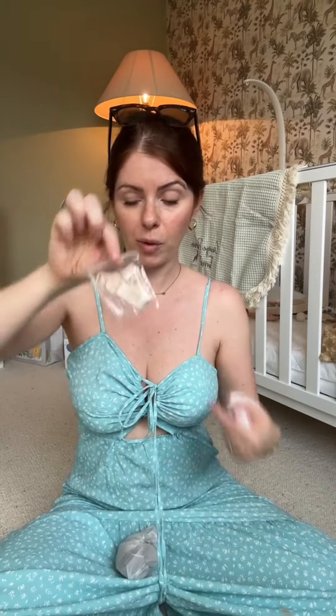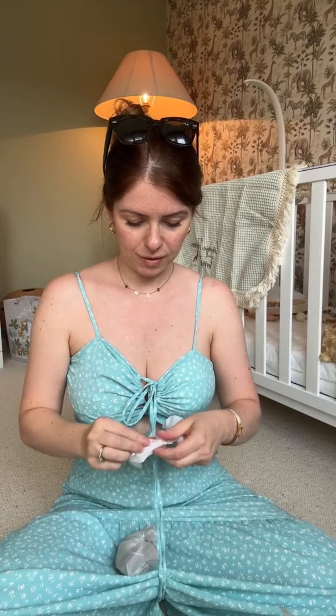So we've got some extenders for your bras. I think these are the parts to go in it — part of the breast pump. Charging cables — you get one for each, there's two in there. And these might be the flanges — these are the different size flanges, I imagine. And a little carry bag.